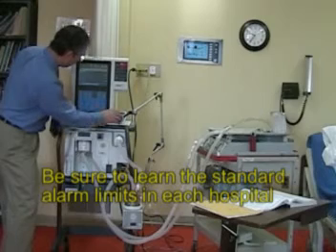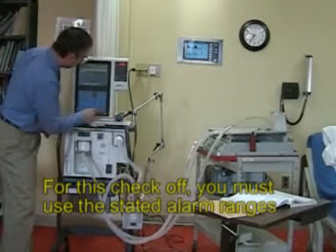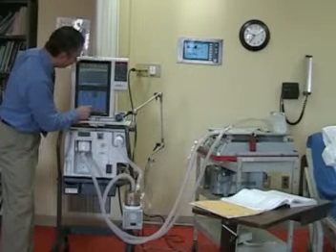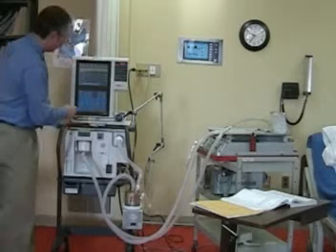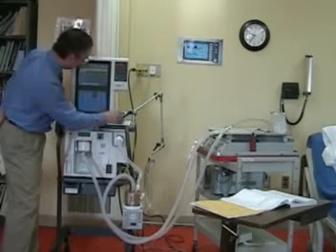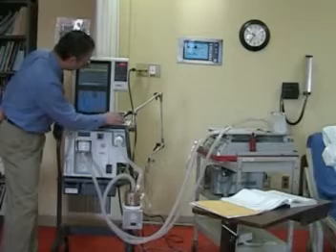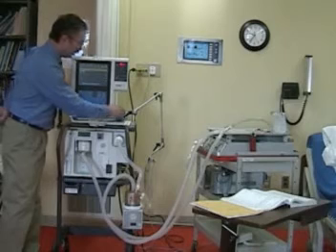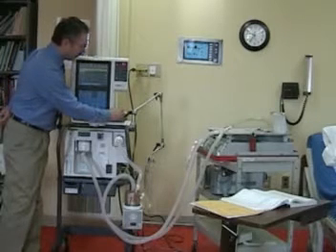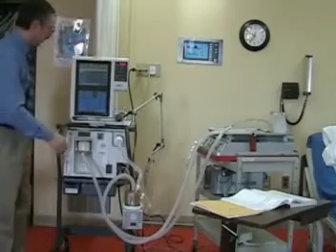And our minute volume alarm should be 2 to 4 over the patient's minute volume and 2 to 4 under the patient's minute volume. Also the exhaled volume alarm should be 100 to 200 greater than, and less than, the patient's exhaled tidal volumes. And once we have those set, we can accept those.